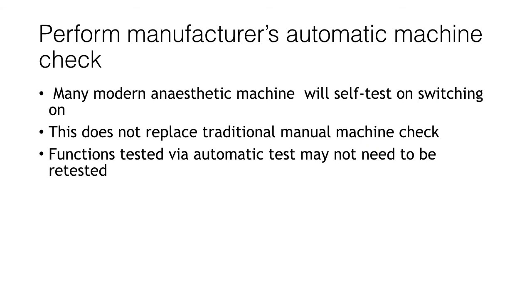Before beginning to manually check the anaesthetic machine, new modern anaesthetic machines often now have automatic checks that they can complete. They will self-test essentially when you switch them on and select this. This however does not replace the traditional manual machine check that we will talk about today. However, any tests that are completed by the machine don't necessarily need to be rechecked as it's assumed that this is correct.